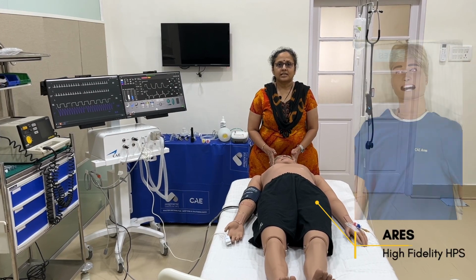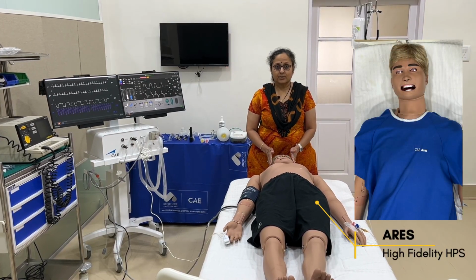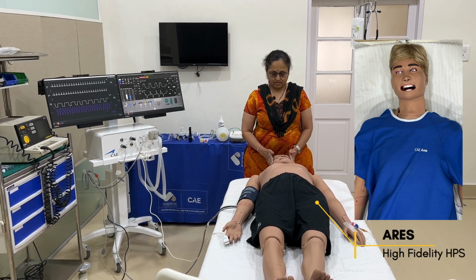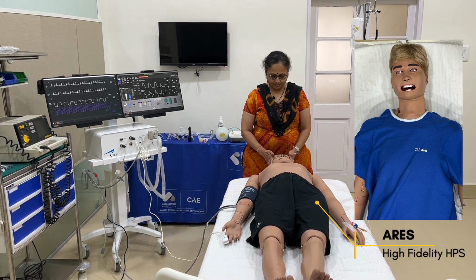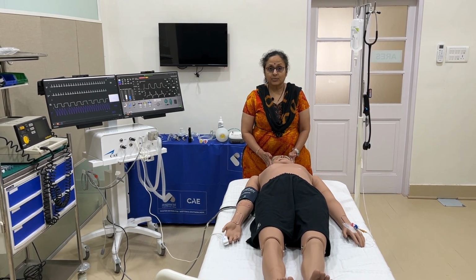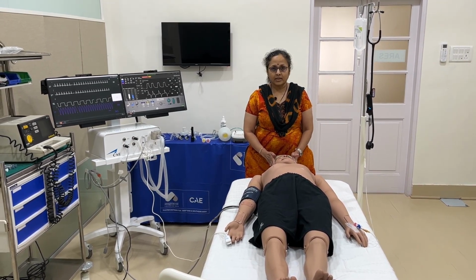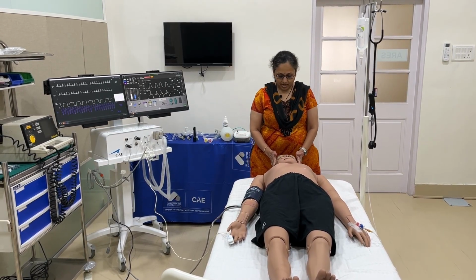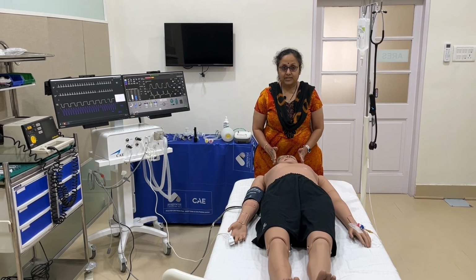Hello students, this is Aries, our high fidelity simulator which we have launched in CPS Mumbai just in December 23. Now I would like to tell you about this simulator.